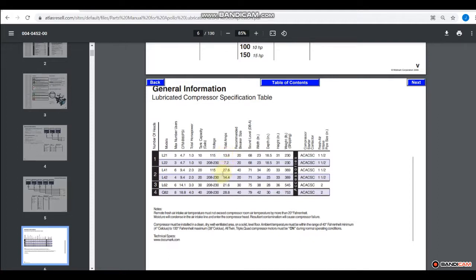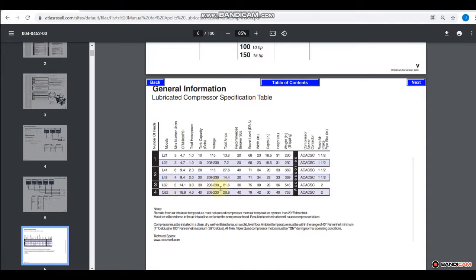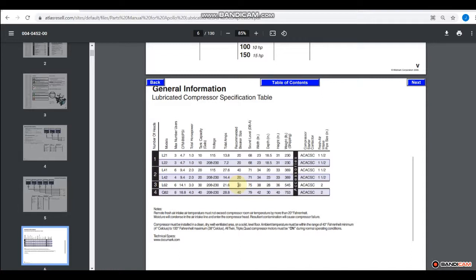The recommended breaker size is always going to be above the amperage that it takes to run the compressor. What can happen is if you undersize your breaker, like say you have this 21.6 amp here, this L62, and then you put in a 20 amp breaker, when it starts, that will actually trip that breaker. And that's on the wall.